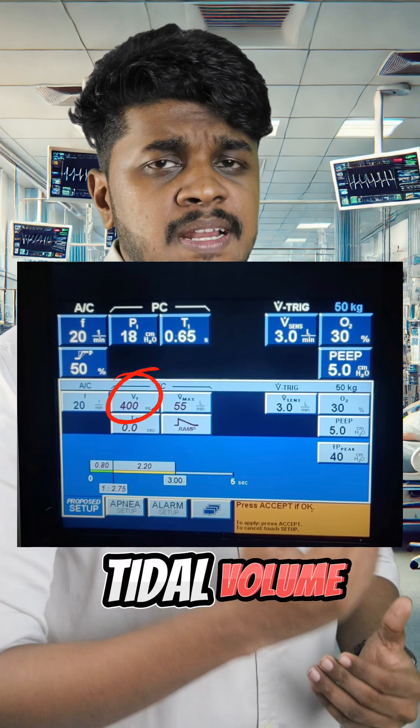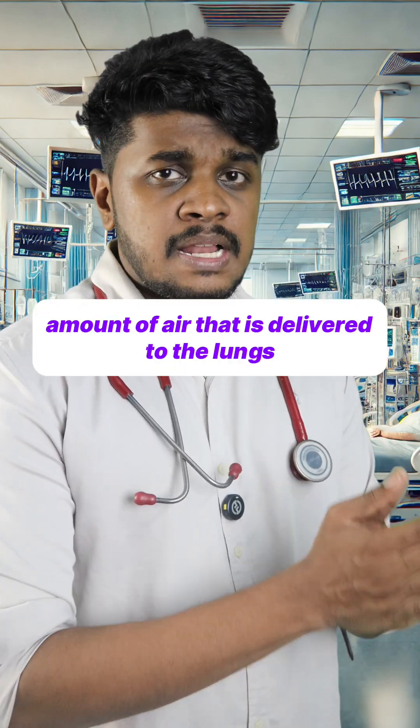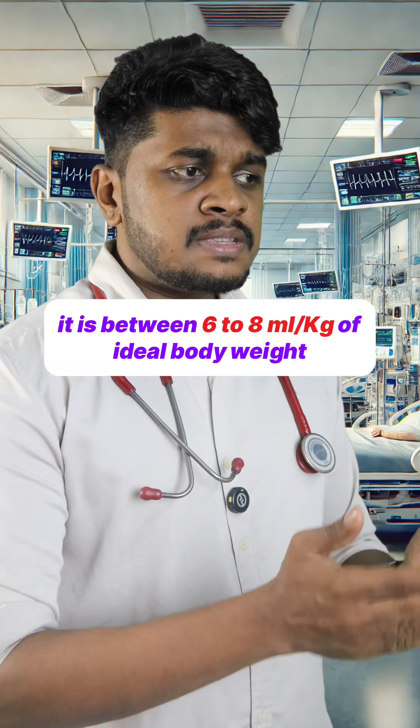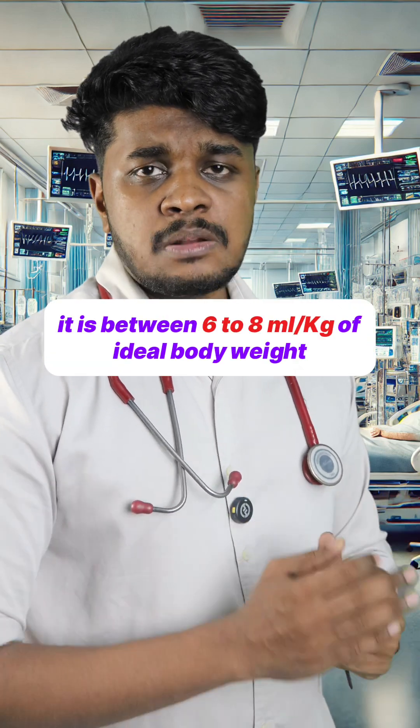Second, we have to set the tidal volume. Tidal volume means the amount of air that is delivered to the lungs in each breath. Usually it is between six to eight ml per kg of ideal body weight.